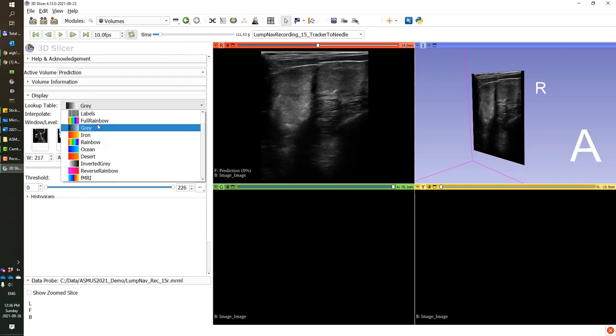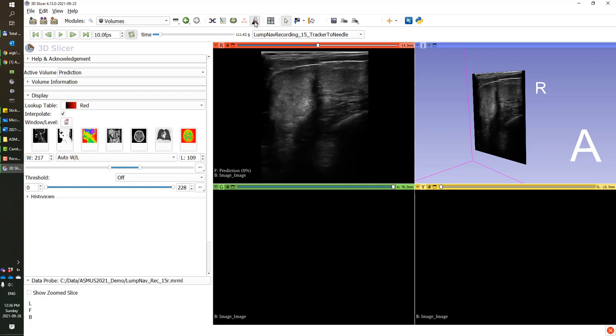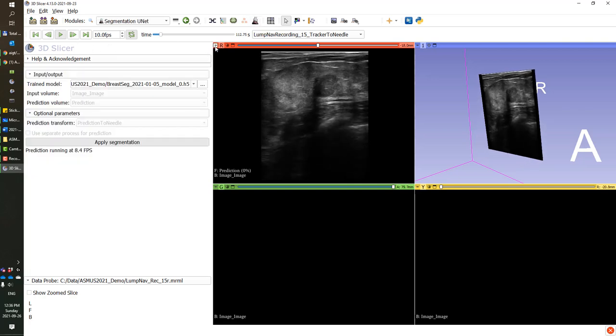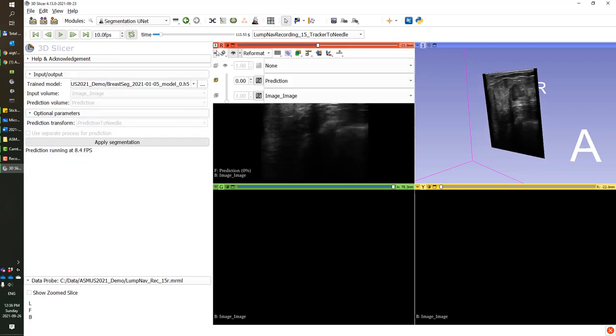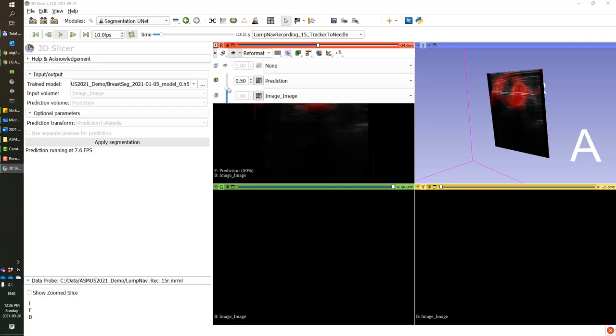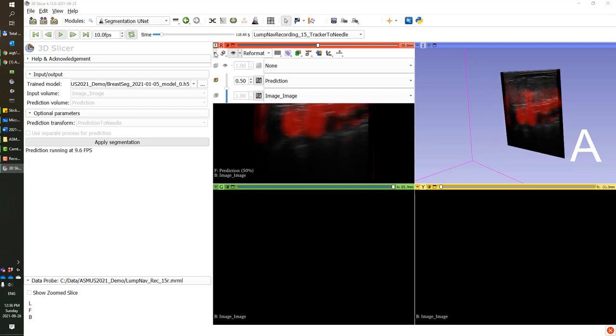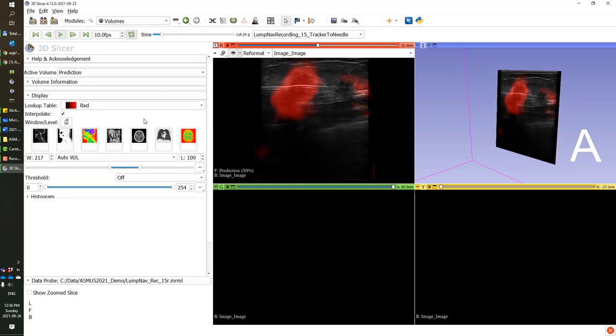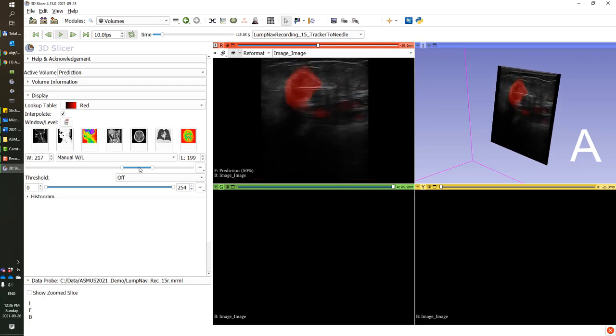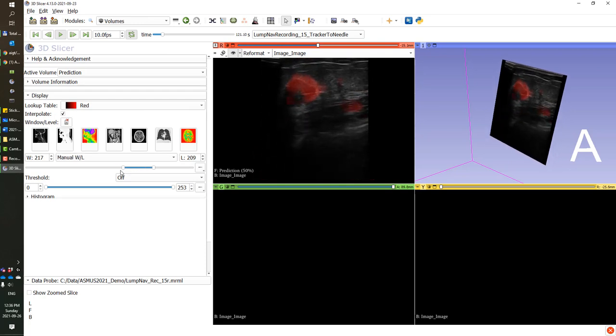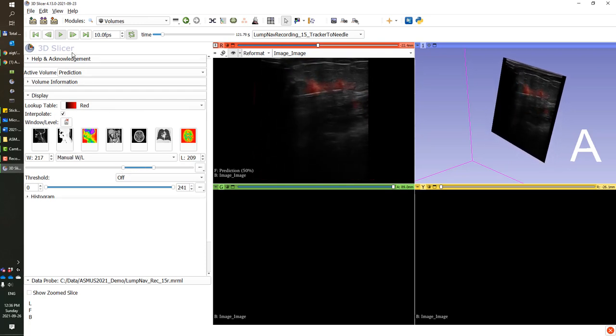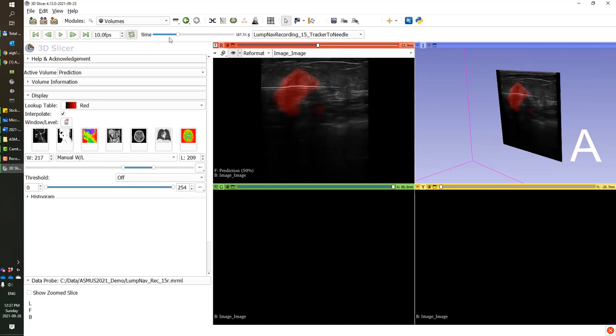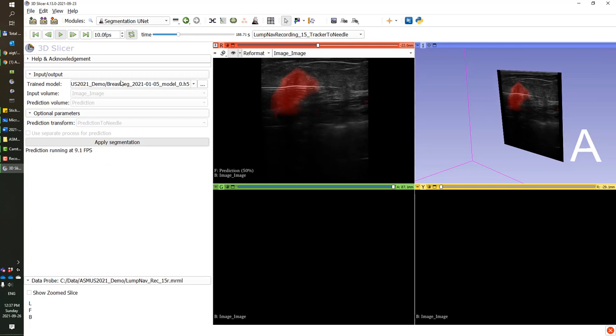We apply red instead of gray colors for the prediction to stand out from the ultrasound, and we can blend it with the ultrasound image in the 2D view. We also need to visualize only the higher end of the spectrum in the prediction intensities to only show the places where it's most likely to be tumor.